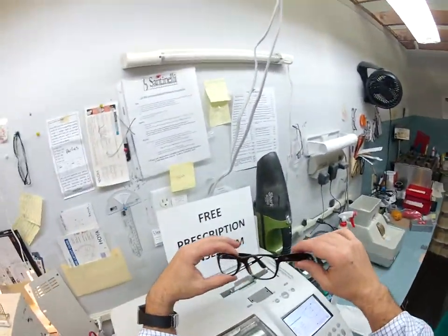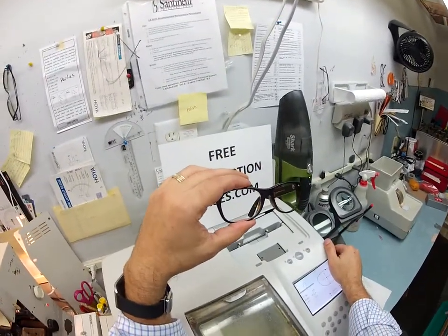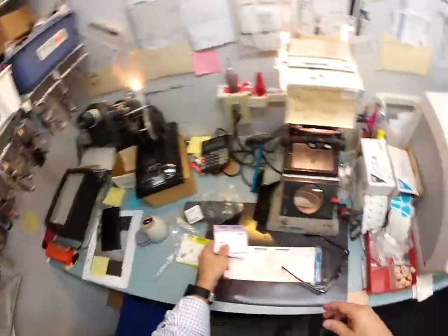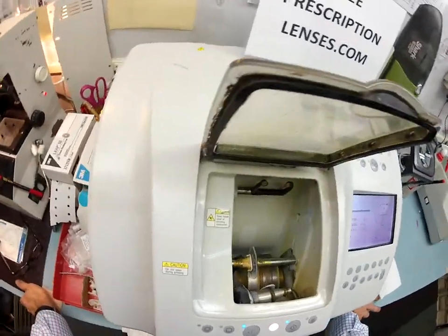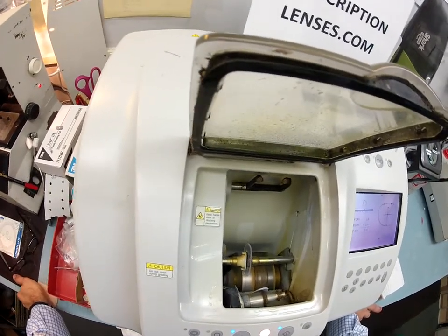So those are the first two features: it's anti-glare and anti-reflection. The third feature is that it comes with a very strong scratch coating to protect the high quality premium anti-glare coating on there. It's reflection-free, glare-free, and nothing on God's green earth is scratch-proof, but this takes a really good beating and keeps going.